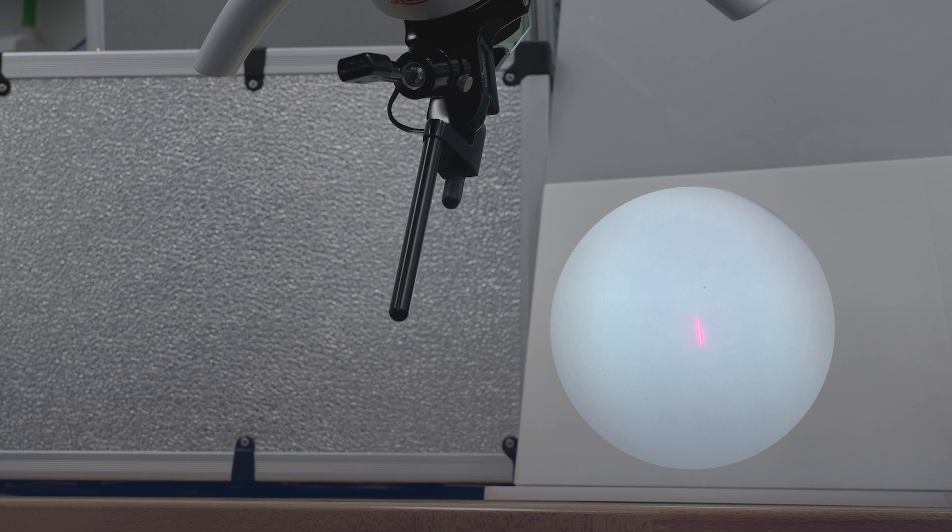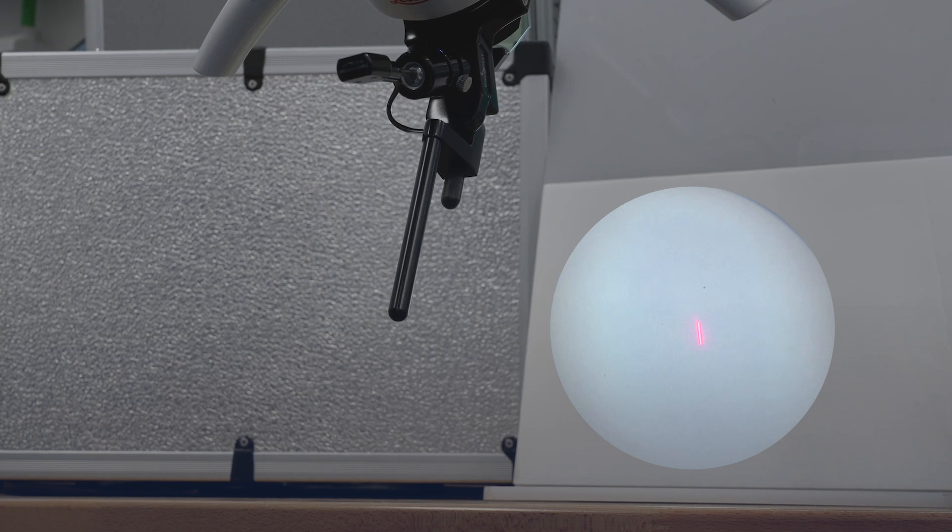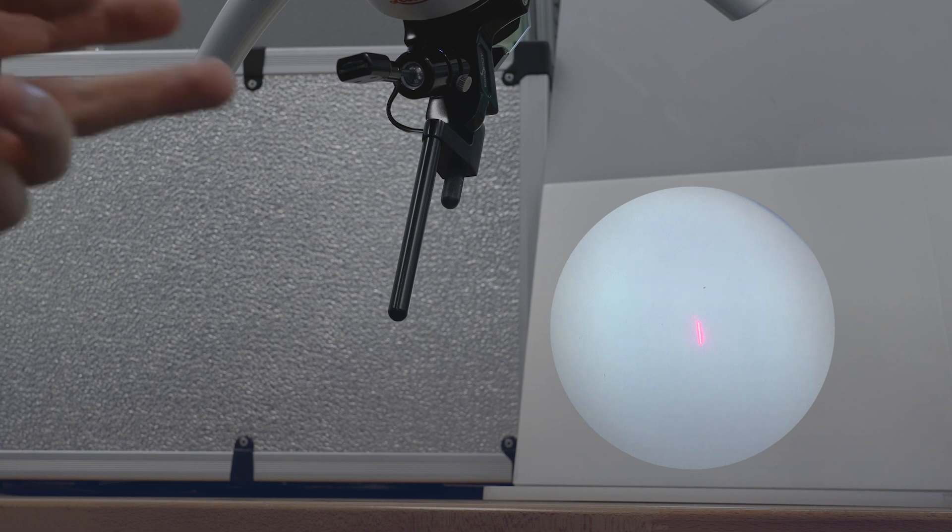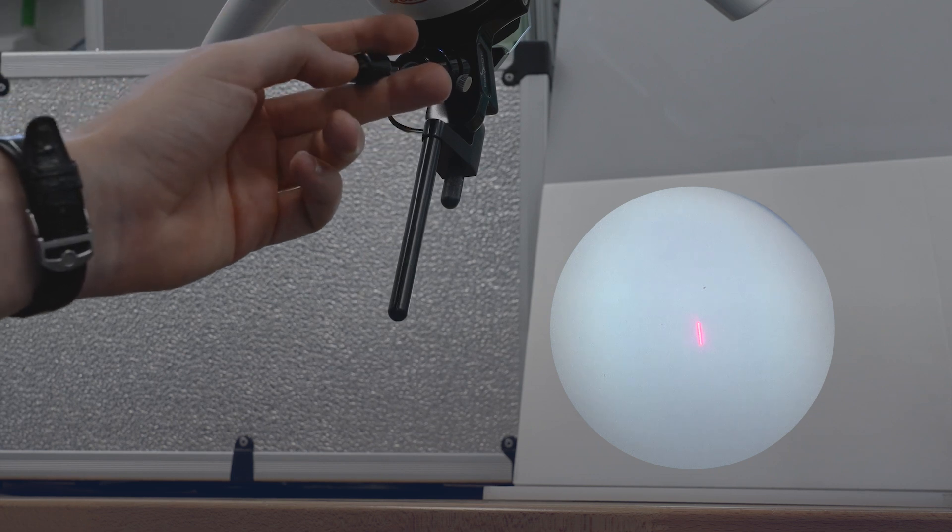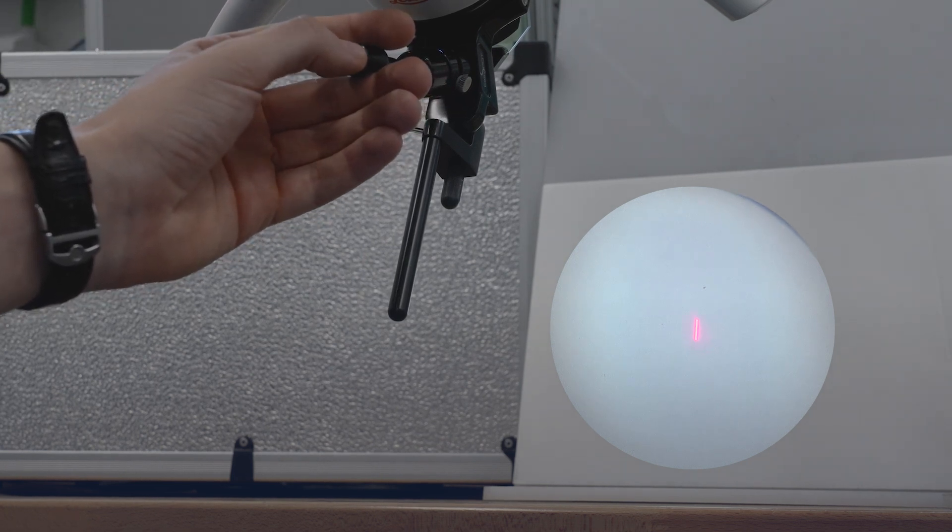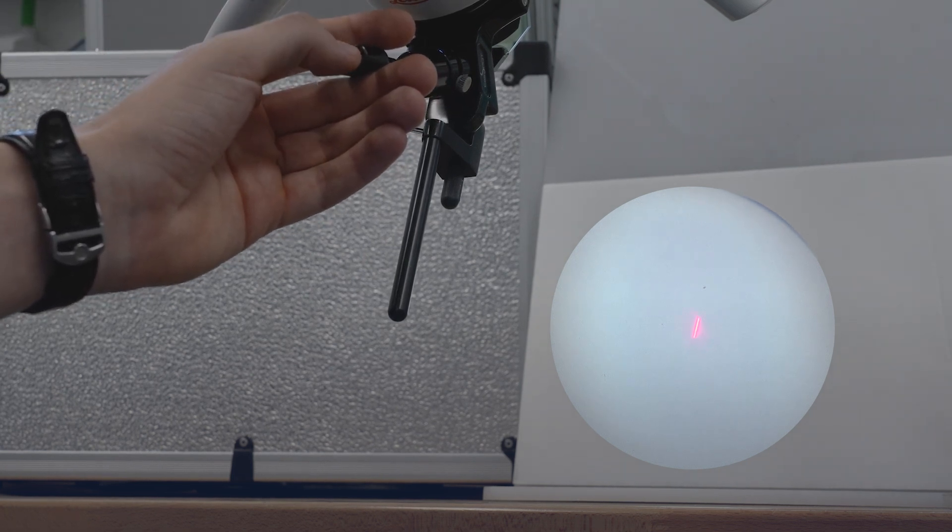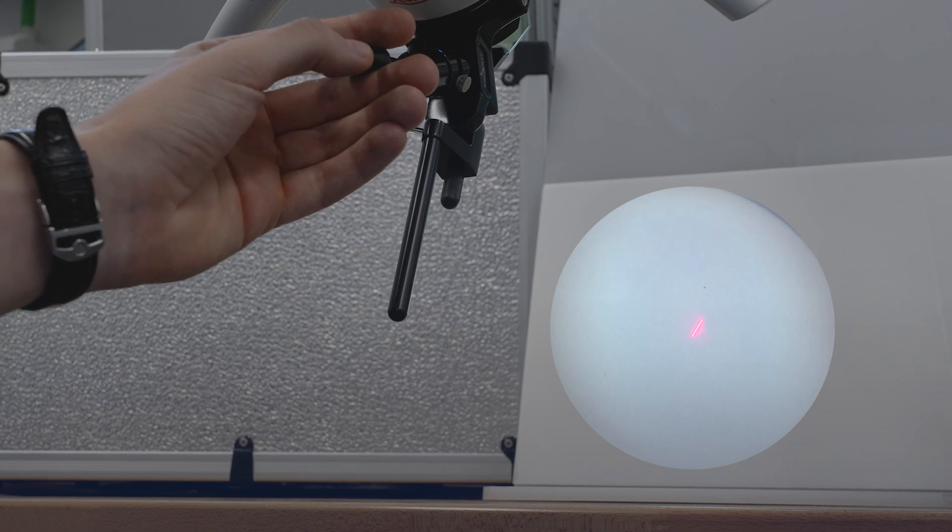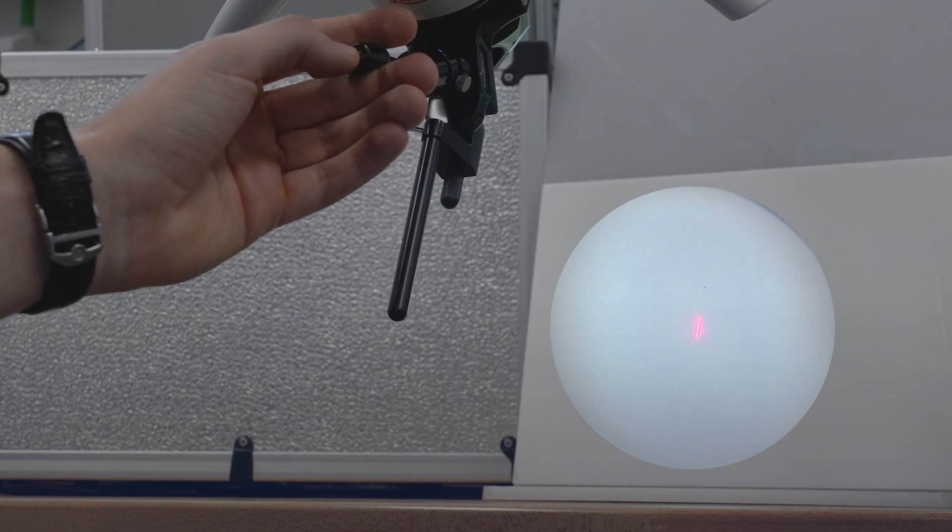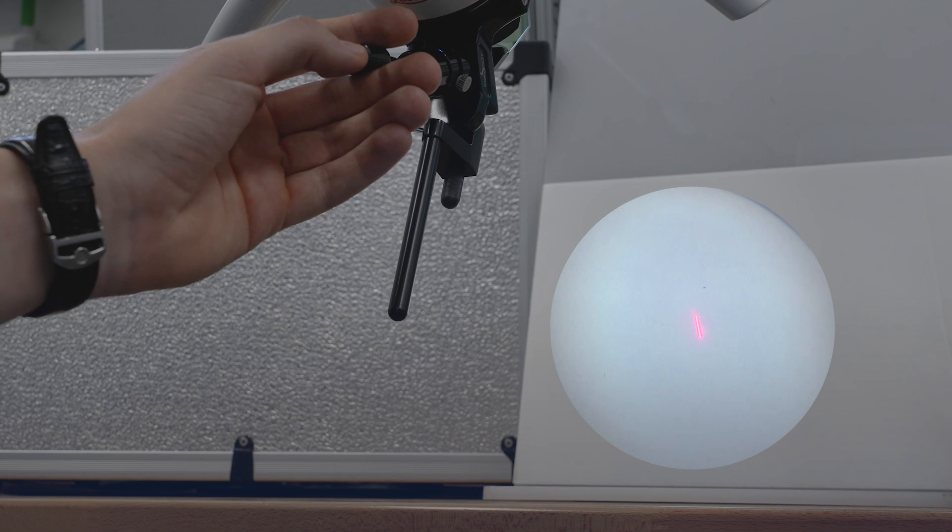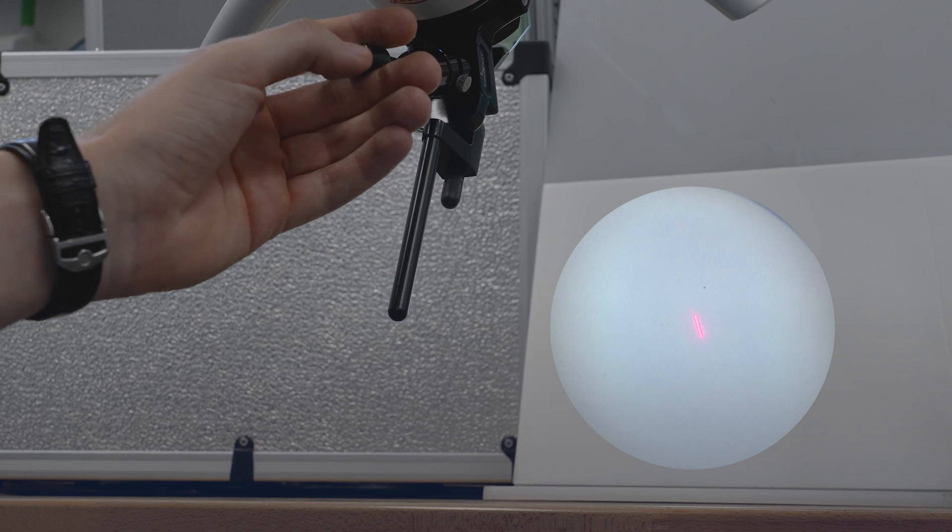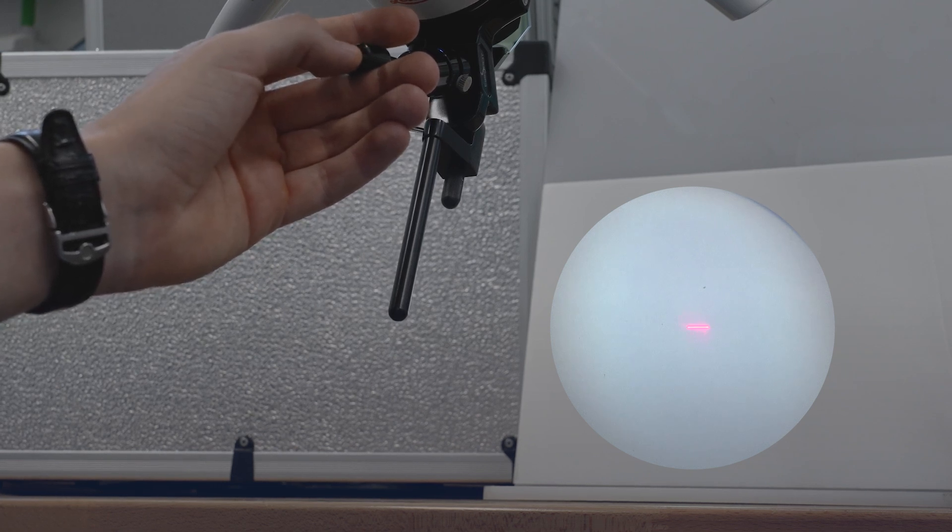The microswitch on the head of the joystick enables control of four different functions. The first function is the ability to rotate the shape of the laser beam. We can now see a line that I'm rotating to the right or left. The shape can be rotated slowly, step by step, or quickly, in a dynamic manner.